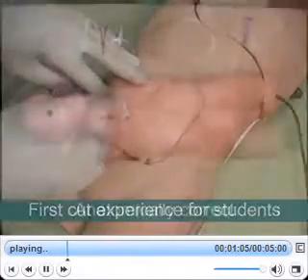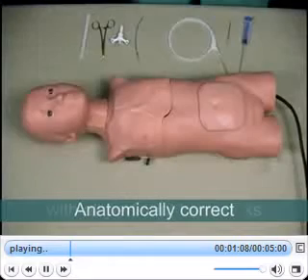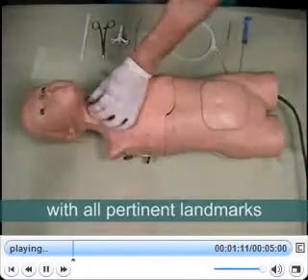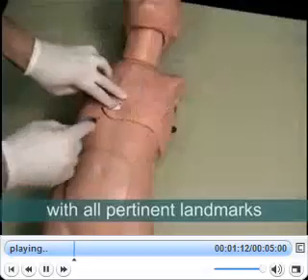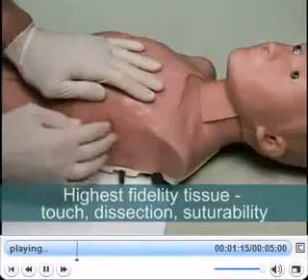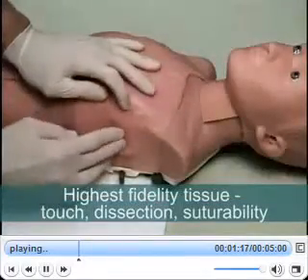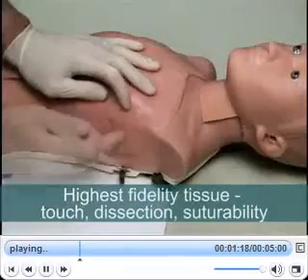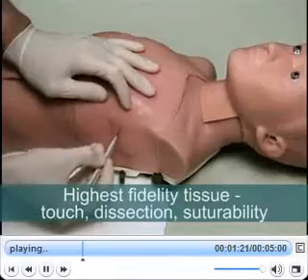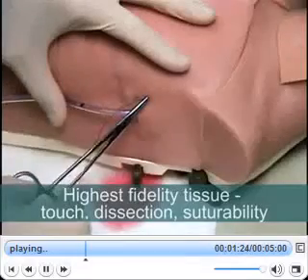This unique solution for pediatric medical education is anatomically correct and has all the pertinent landmarks for locating each procedure. Trauma Child's body, form, skin, and replaceable tissues have the highest fidelity touch, dissection properties, and suturability of any simulated tissue available today.